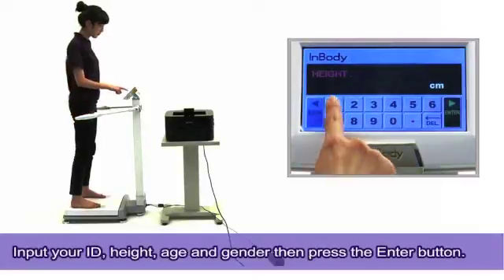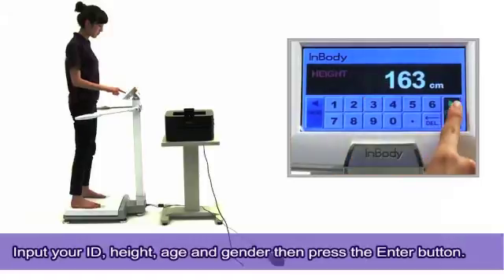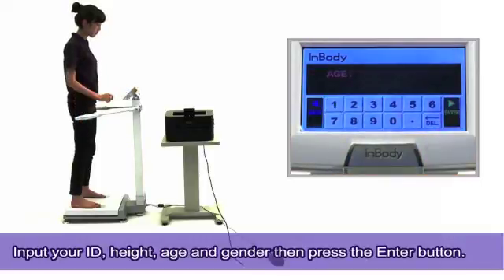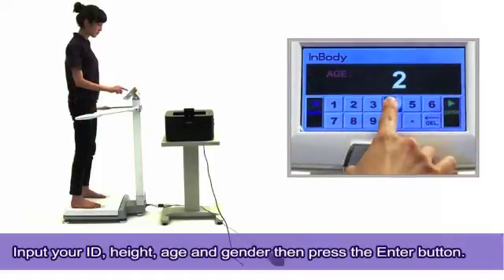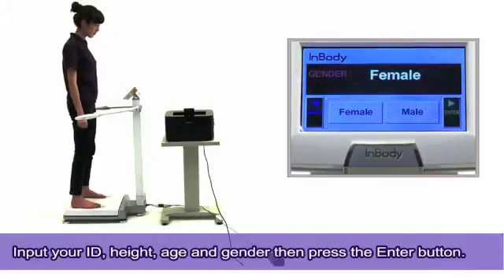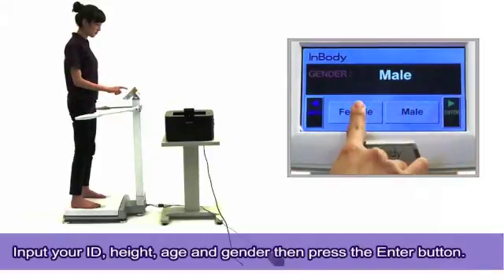Input your ID, height, age, and gender, then press the enter button.